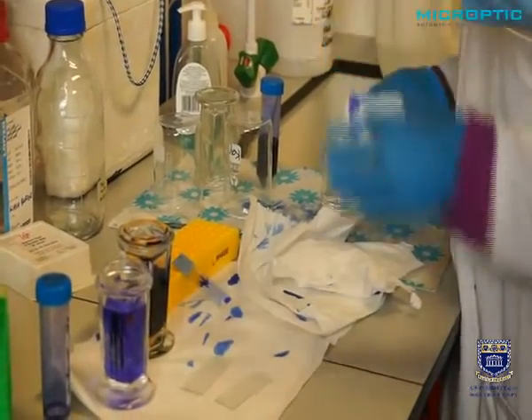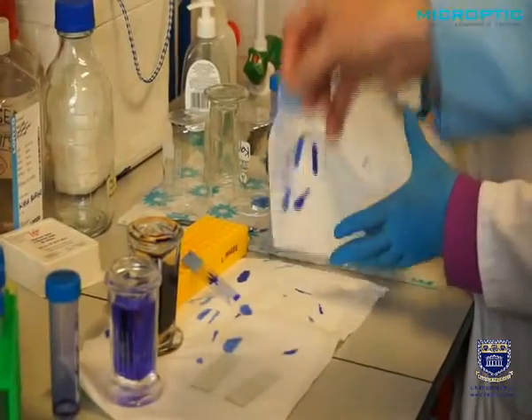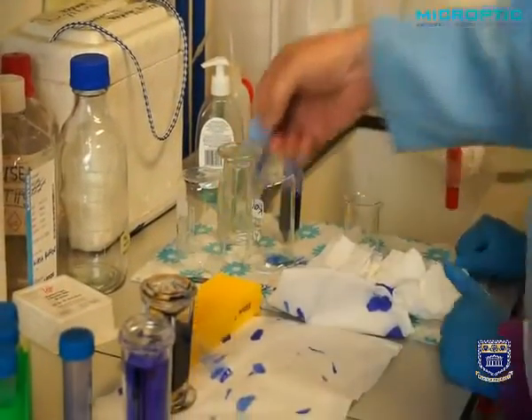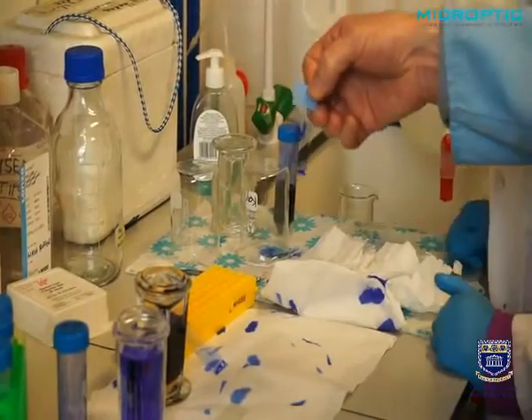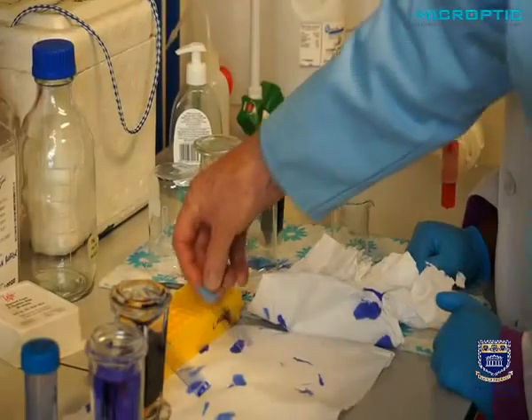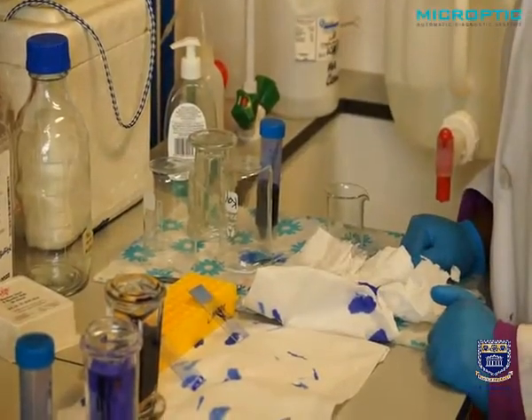Thank you. And you can see that is a very nicely stained slide. This one, maybe there was too much sperm, too much seminal plasma proteins there, and maybe it's not a good one to use at all. Perhaps stain another one.